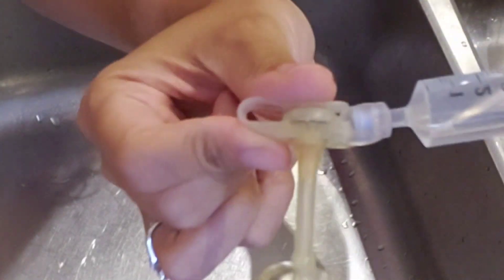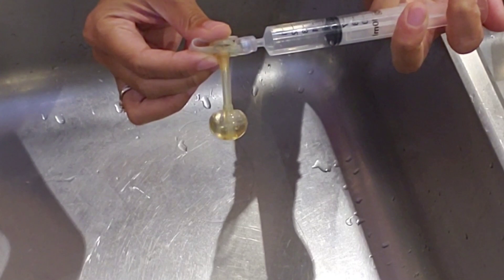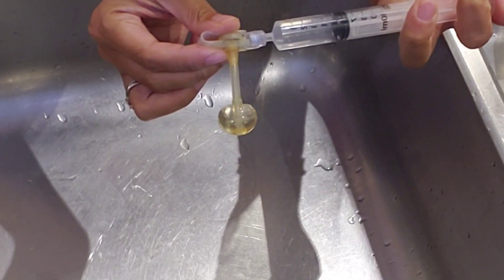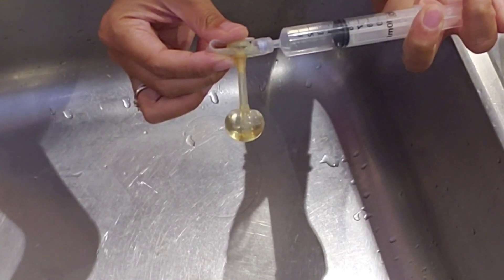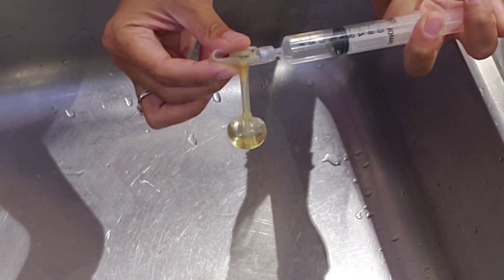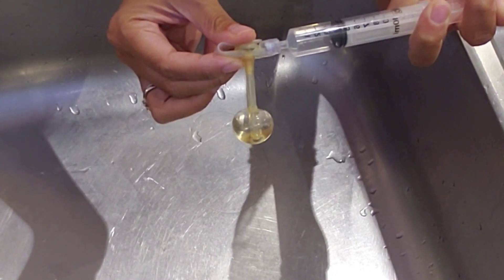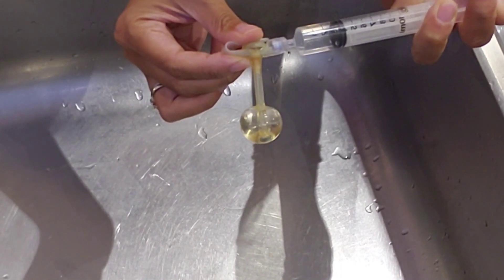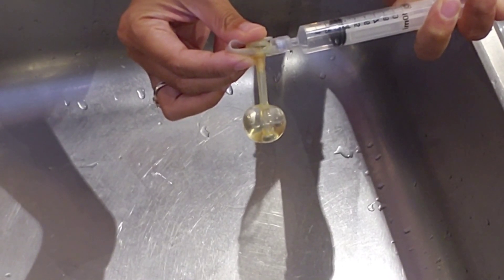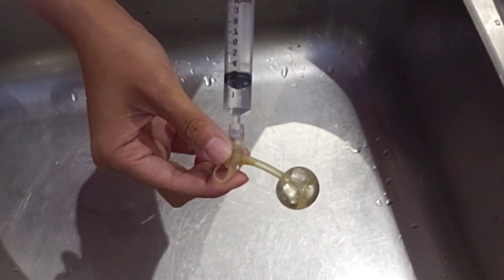Here's four — this is how much is supposed to be in it. We're gonna keep going, and if it doesn't blow up by the time we're out of water, we can put more in. We're at five... six. It's wobbling — no, that's just me. Seven. Eight — good boy, look how full it is! Whoa, it's so full!